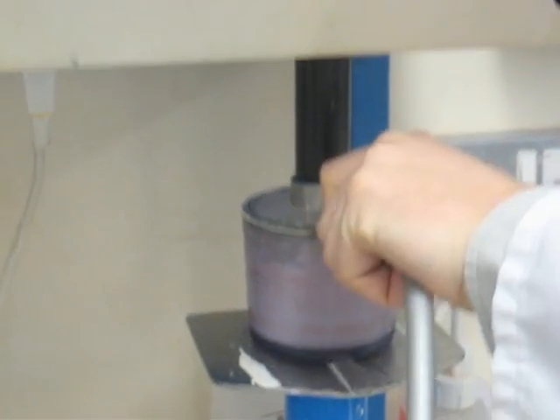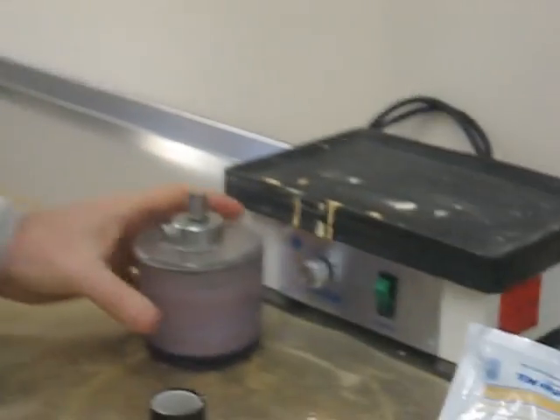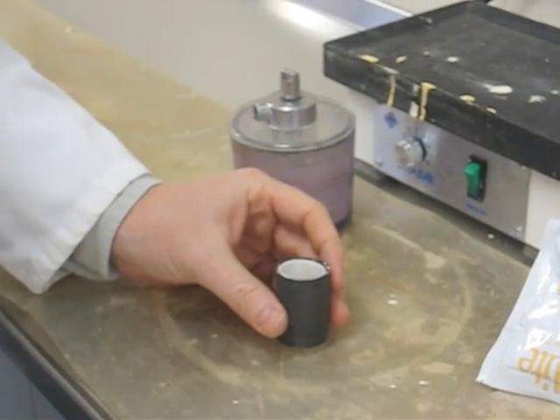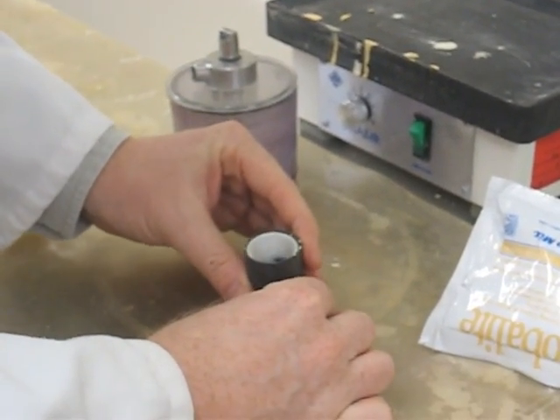And while it's doing this you're getting your mould and everything onto the vibrating table and checking everything is ready to go. Over to the other bench then. That's just me blowing off the excess surface tension reducer. You may opt to use an airline for that.